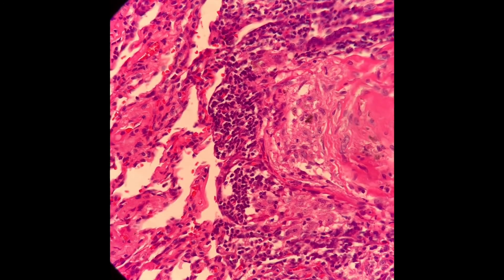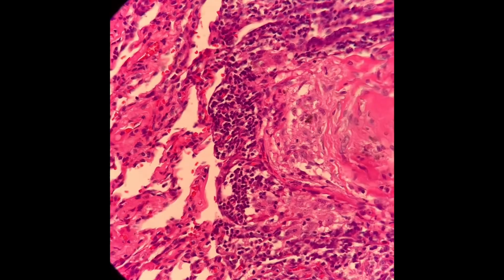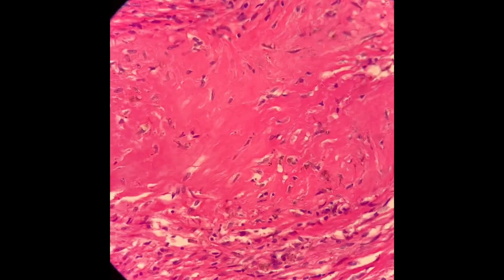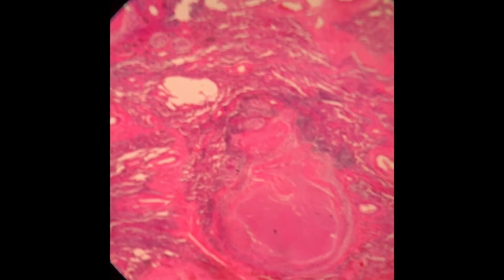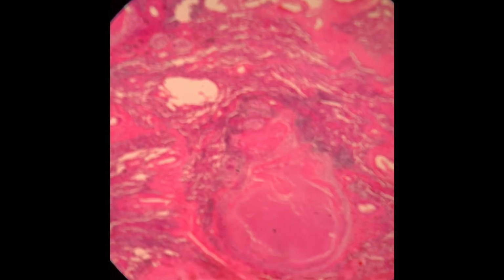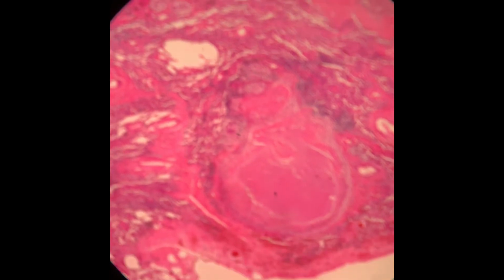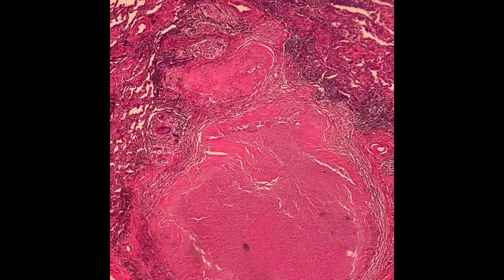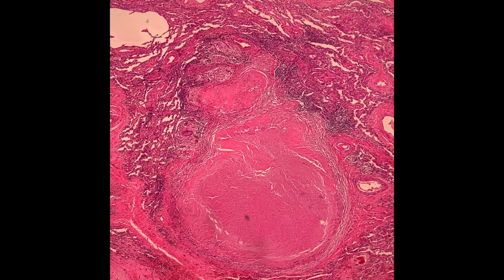So I hope you understand, and if there are any questions, I'm happy to answer them for you. So I end this video with the low magnification of the caseating granuloma, so that you can appreciate it well. Thank you.